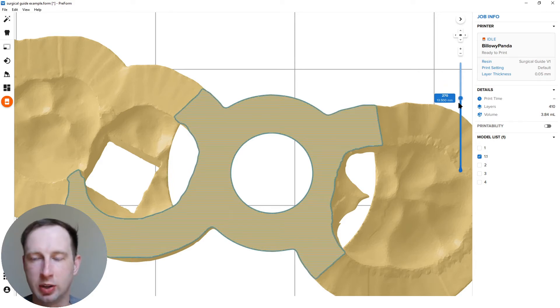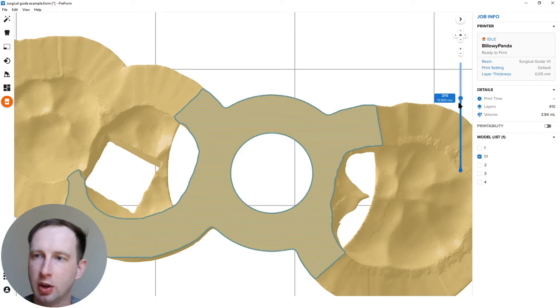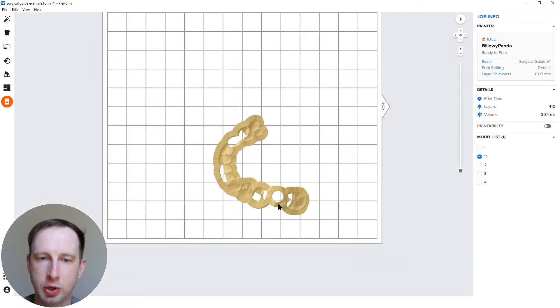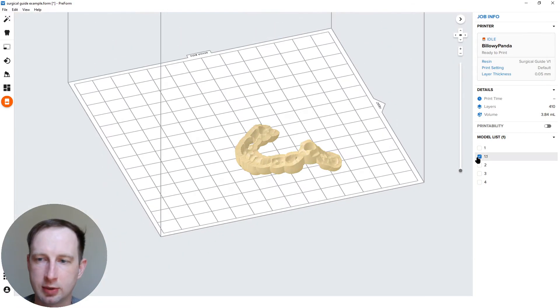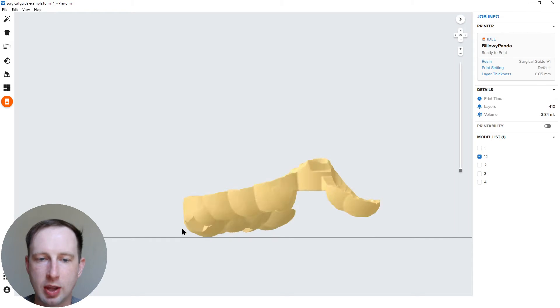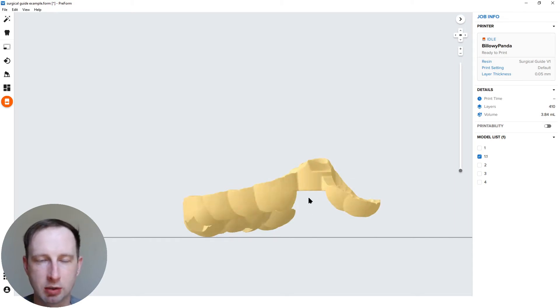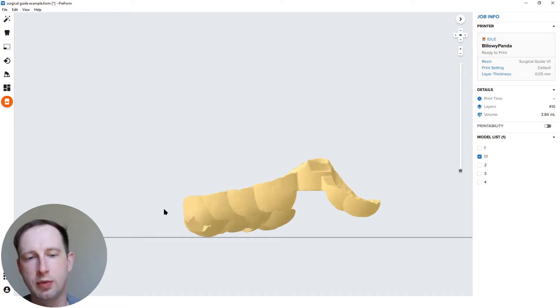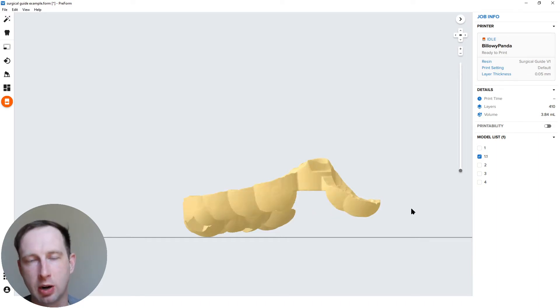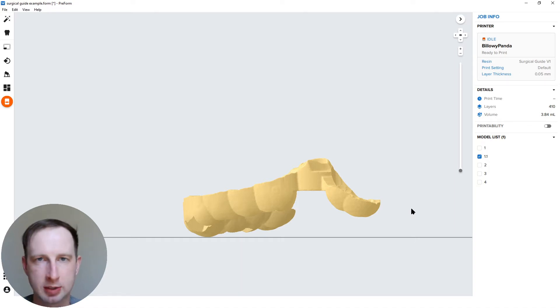There's a really easy way to do it, even with multiple implants. I'm going to turn off this guide. One more thing: ideally with this hole in mind, a secondary consideration. So I've got the side view here. I use my arrows to snap down to a perfect side view. You want, if you could draw a sort of occlusal plane through this guide, you want that to be as parallel to the build platform as possible. That we just shown in testing is the best and most accurate way to print these parts.